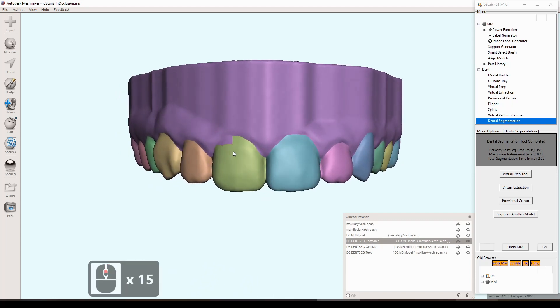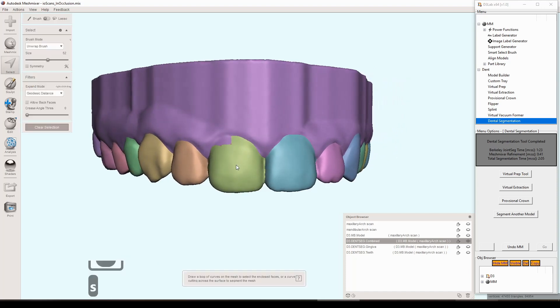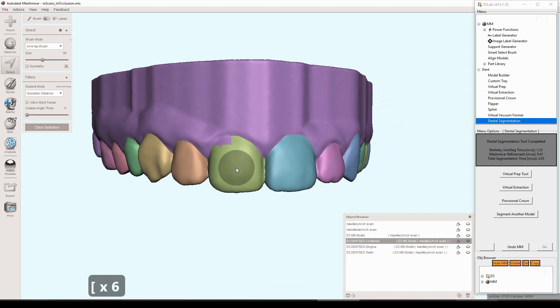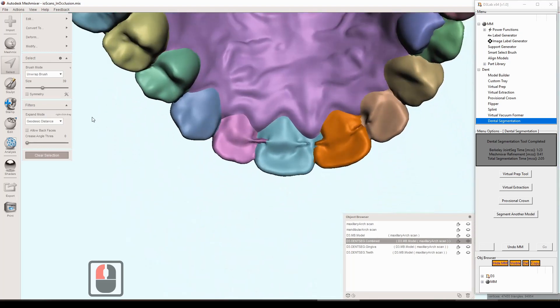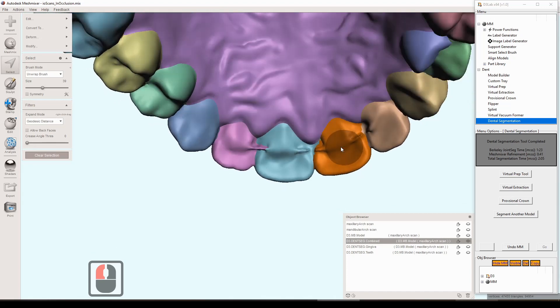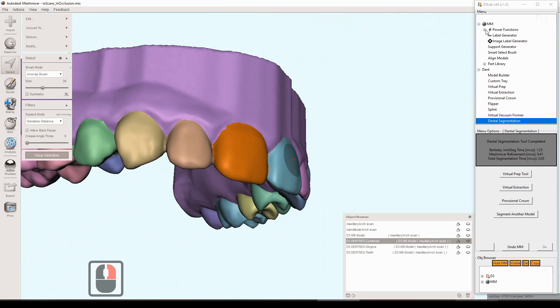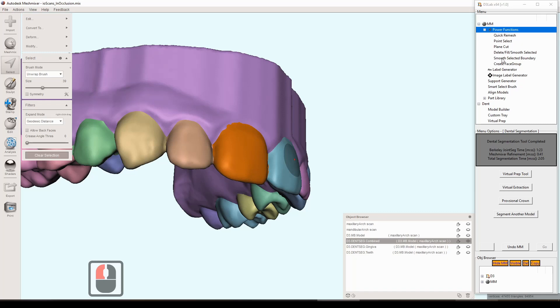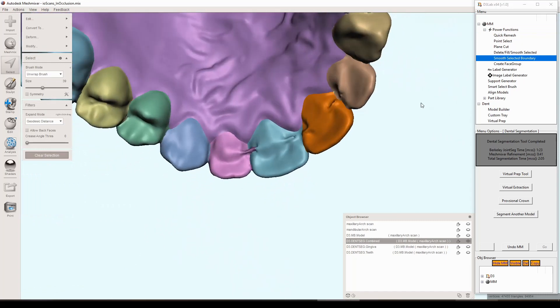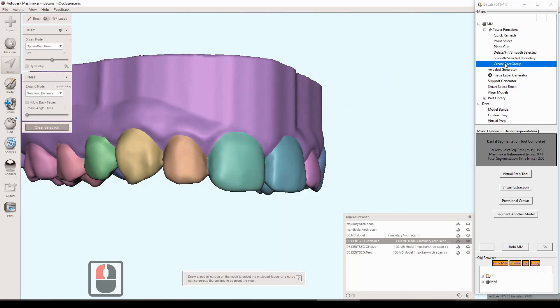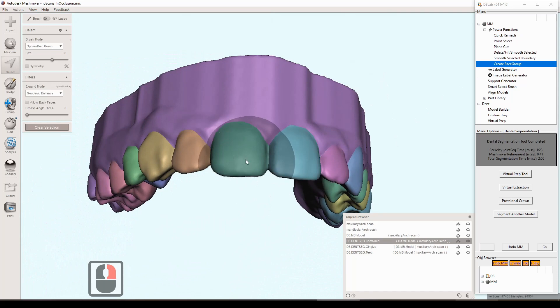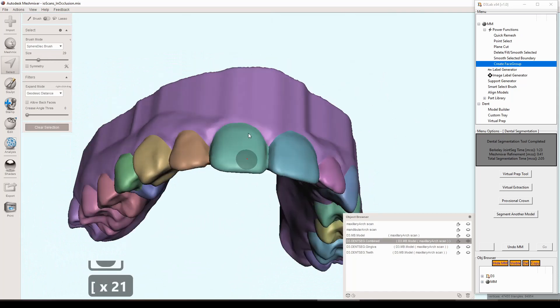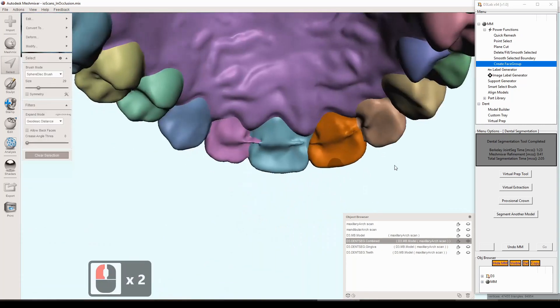It's nice because these things are in face groups color-coded. Once you have the select tool by pressing S you can change the size using the left open bracket, you can see down there in the left corner when I'm pressing. If you double click on the tooth now you have the tooth selected, and I just select that part that was not a piece of the tooth originally. I look at the back side there, the lingual side, and try to make sure everything looks okay. Then up in the power functions area there's now a tool called smooth selected boundary. I hit that and it takes that triangulated looking selection and makes it a smooth boundary, and then I hit create face group and it makes that whole selection into a new face group. So it corrected that original inaccuracy and it was pretty easy to do.